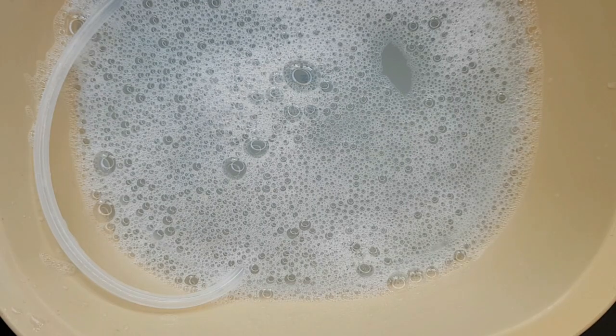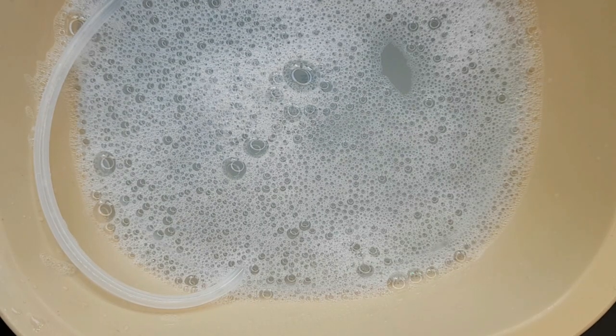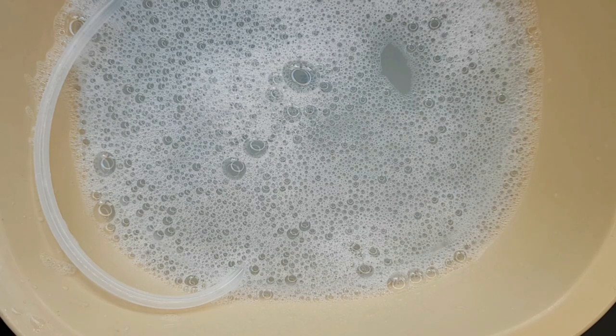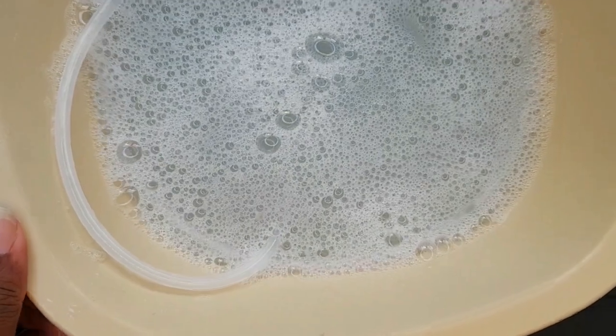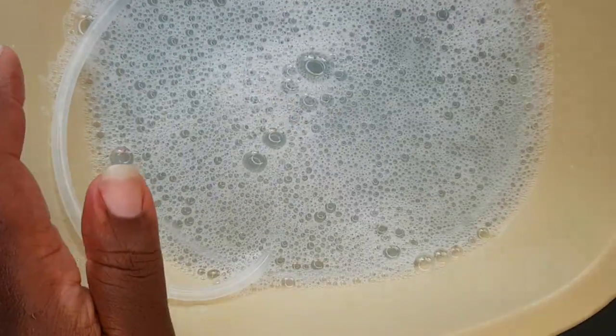The first thing you're going to do is soak your tubing in warm soapy water for about five to ten minutes, and then once you're done with that, you're going to change the water.